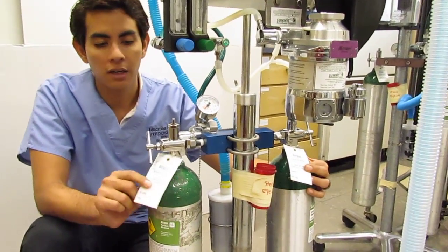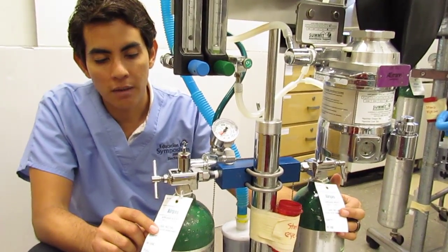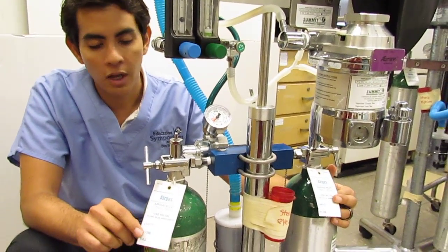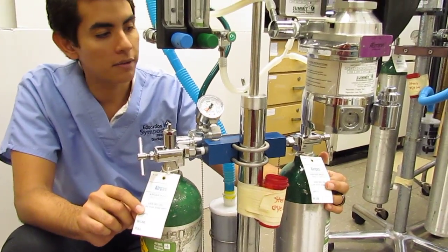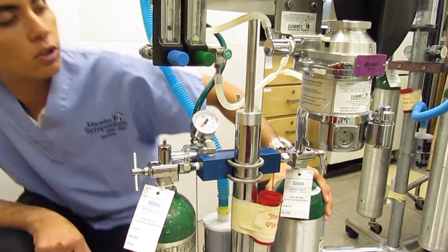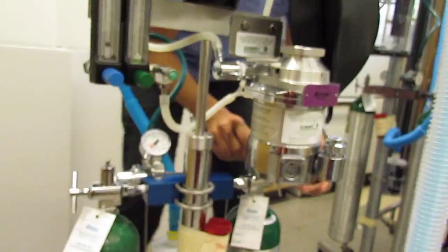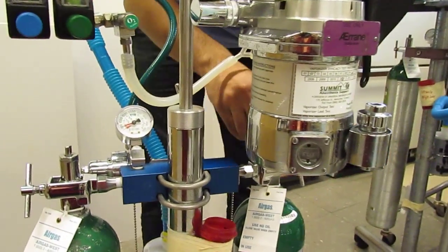I do recommend paying close attention to these tabs and using them in practice as they will help you aid in the identification of a full tank or an empty tank. Let's see how much of this in use tank has been used. I'll go ahead and open this up.